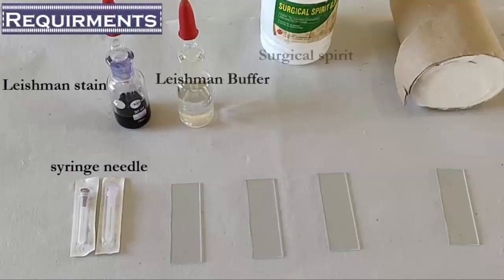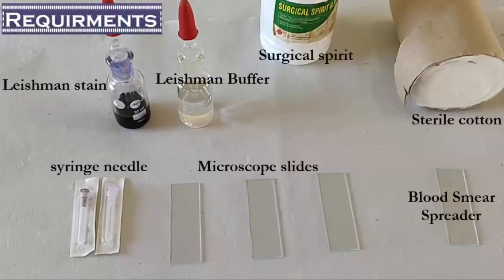These are the requirements for our practical. For this practical, to stain our WBCs, we are going to use Leishman Stain that contains both acidic and basic dyes.